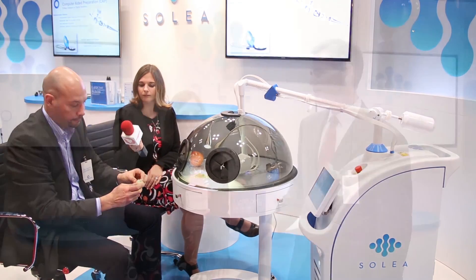Thank you for that demonstration — it was very interesting. How can you sum up what we just saw? Well, I'd sum it up by saying what you've seen today is the first computer-aided preparation system in dentistry. We've had computers involved in diagnostics and in restorations, but until Solea, everything in the preparation part of the process was done by hand and eye. Now we have a computer that manipulates the beam and actually plays a key role in the quality of the preparation. That's what computer-aided preparation is, and Solea is the first computer-aided preparation system out there.